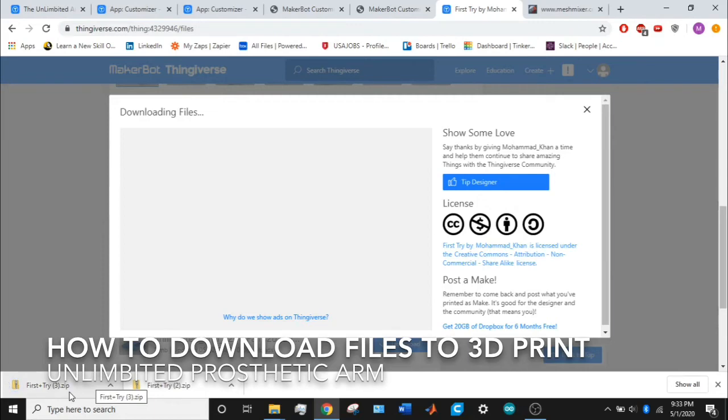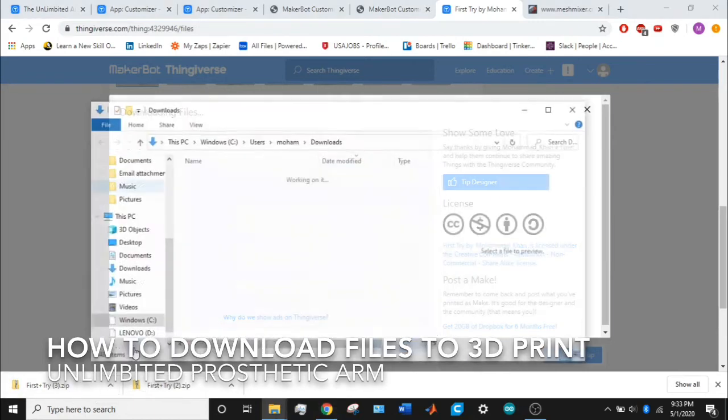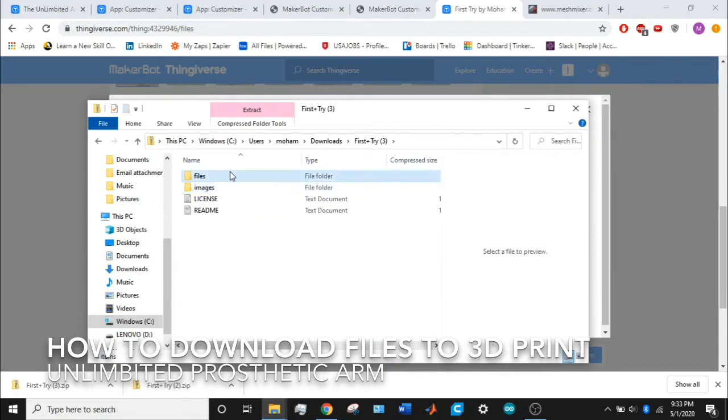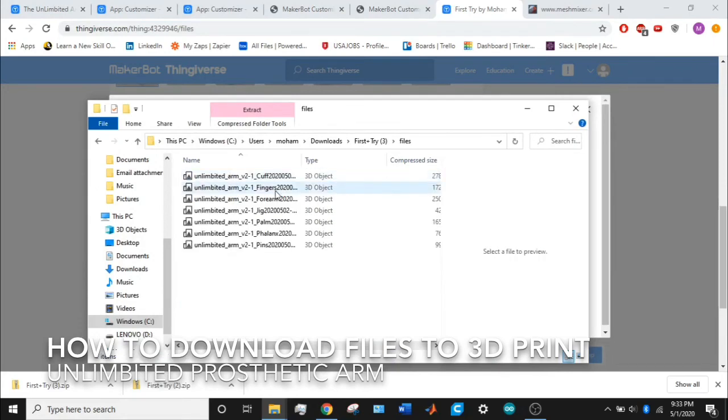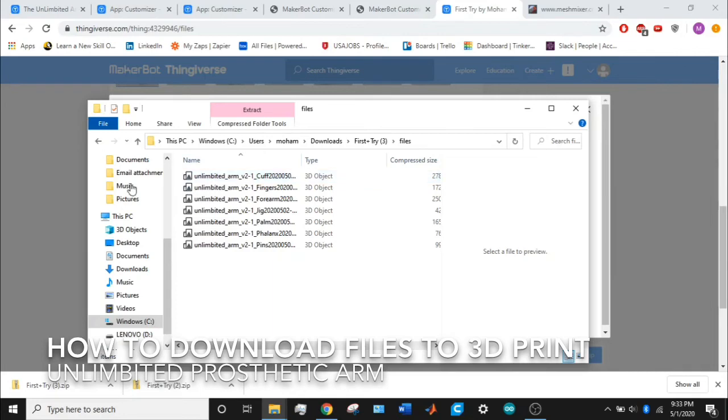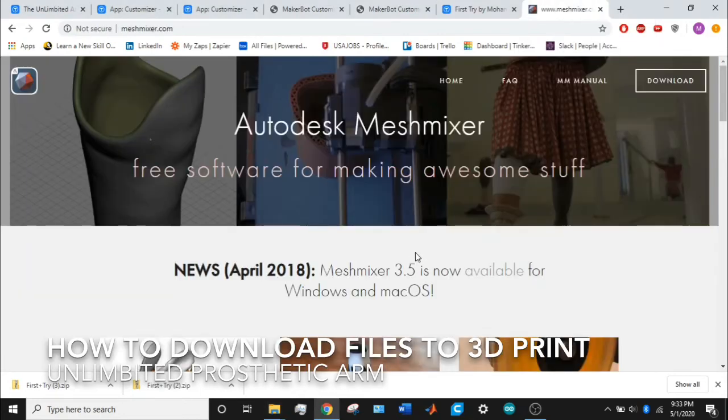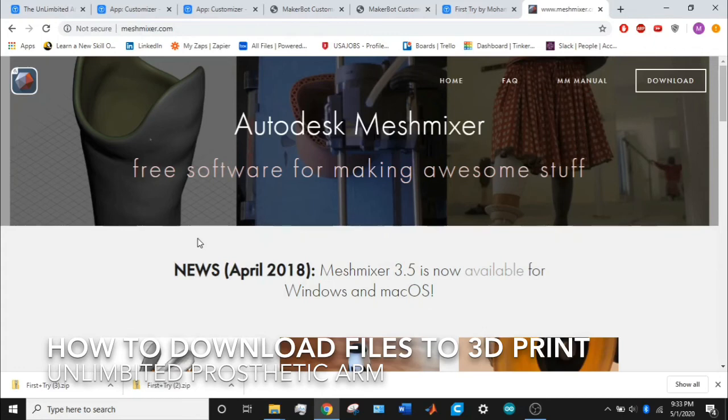There's a zip folder filled with STL files with 3D objects. Then you should be able to send them directly to your 3D printer and be good to go. If you need to convert these to STL files, you can find a converter online or you can use Autodesk Meshmixer, which is a great software for editing STL files or converting things into and out of STL files.